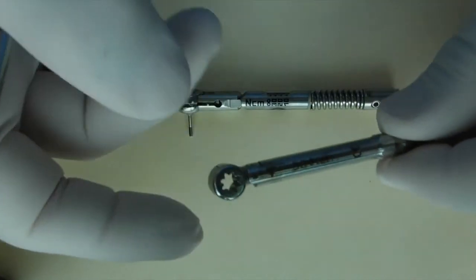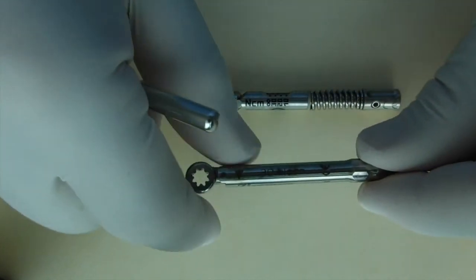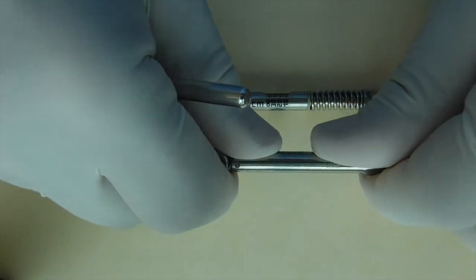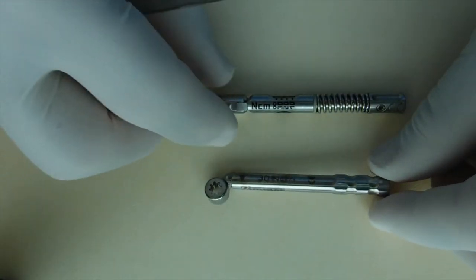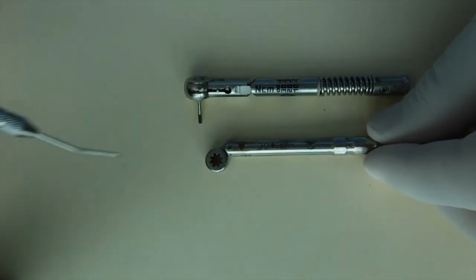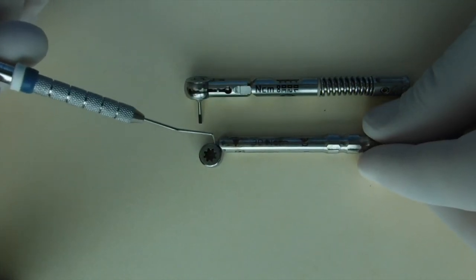It's also worth pointing out that with this type of torque wrench, whenever this torque wrench is sterilized, it should be sterilized in the broken position to prevent corrosion of the internal mechanisms.